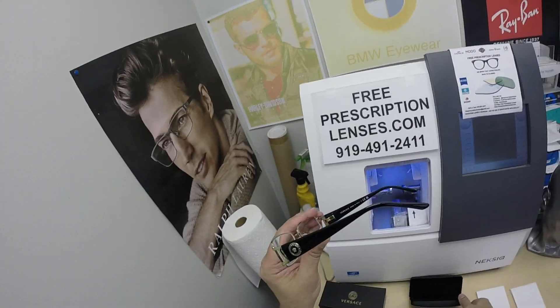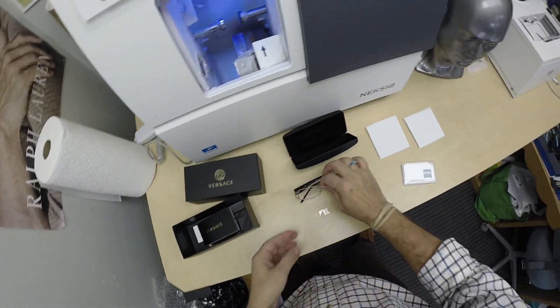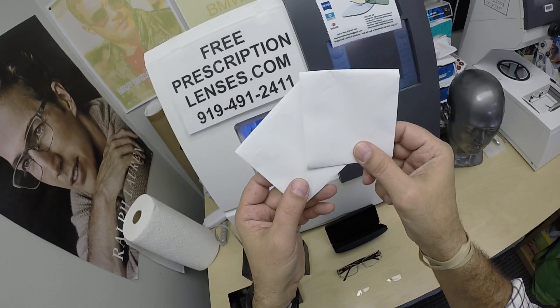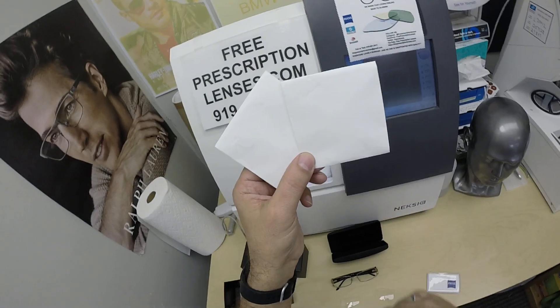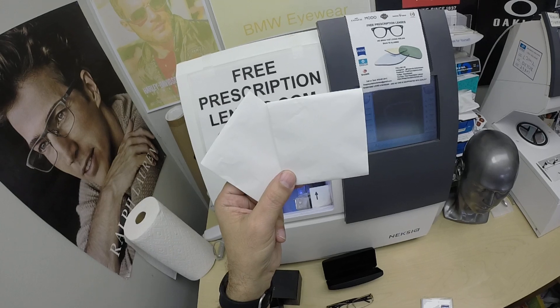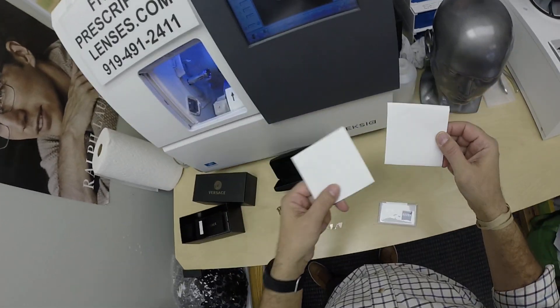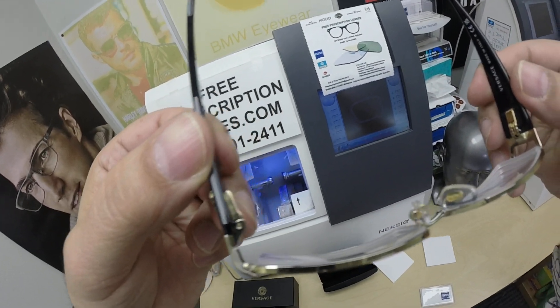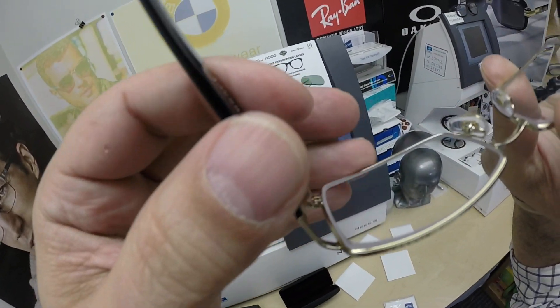Of course it's got the same Versace font on the inside, made in Italy, and Ellis got it with the Zeiss 167 lenses. I would love to have the packets with Duravision Platinum stickers on there, but sadly more and more frequently I'm getting these lens packets without any stickers. I was at a restaurant yesterday and there was a sandwich board outside that said there's a nationwide labor shortage — be nice to the people that showed up. I'm glad I was able to get these as thin as I did. These are the 167 lenses — look how thin I was able to get these for you, barely any recognizable edge thickness.